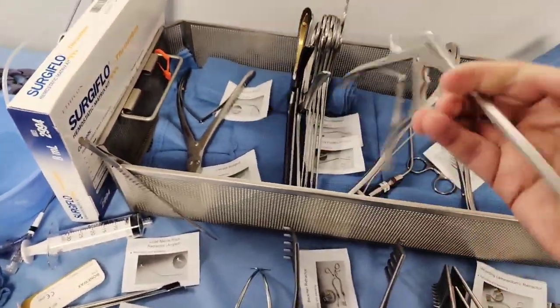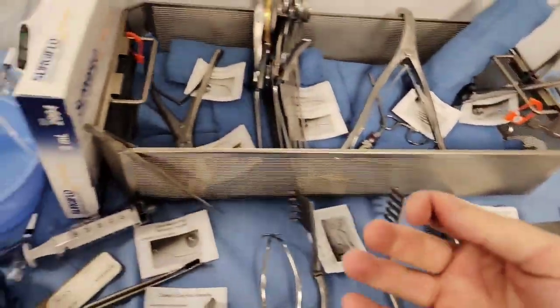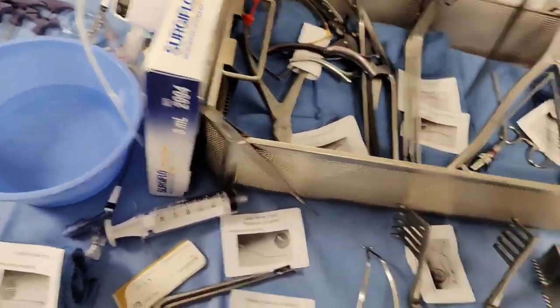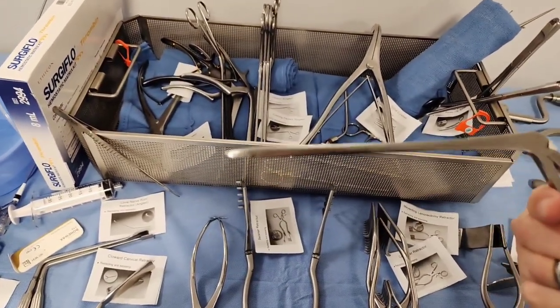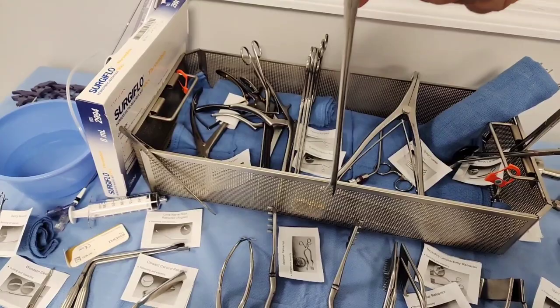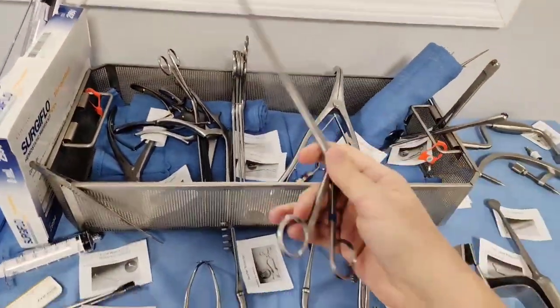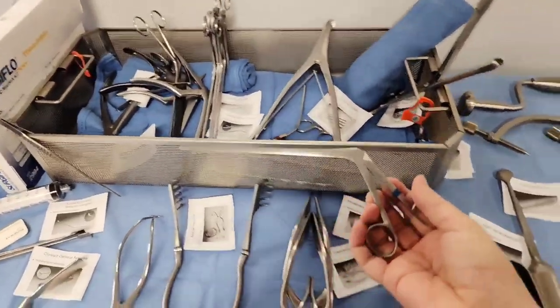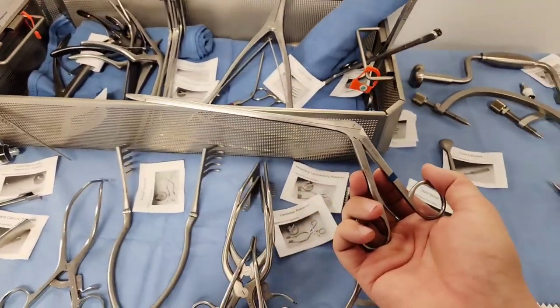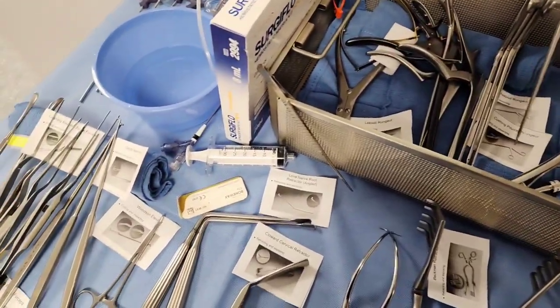Make sure you specify the size — maybe he wants a number 2 instead. They come in multiple sizes. Next up is what they call a Cushings pituitary rongeur. There's straight bite and there's back bite — they can go forward, straight, or back. If you're down in the body itself, it's hard to manipulate if it's just one way. For CST purposes, if you're taking out disc fragments during a laminectomy or discectomy, you're using a Cushings pituitary rongeur. They vary in sizes — small and large.